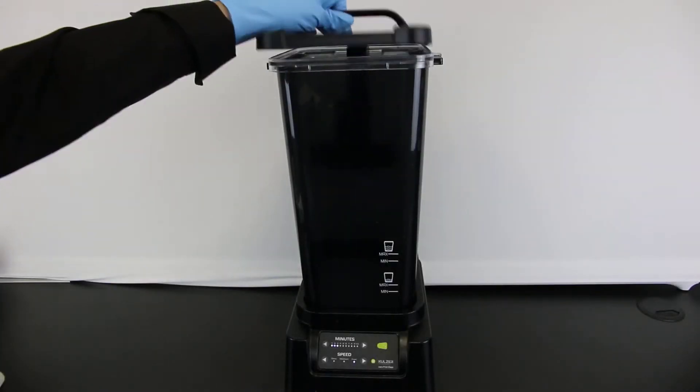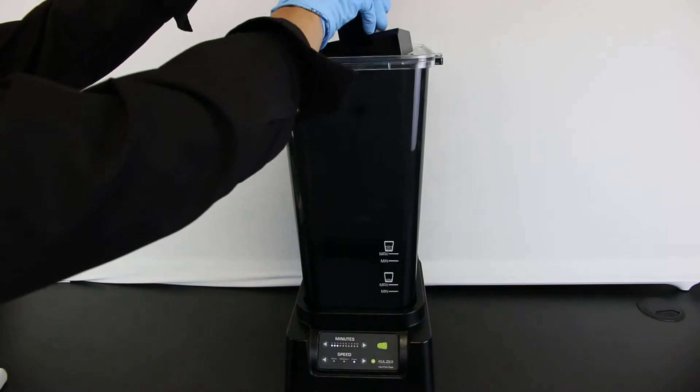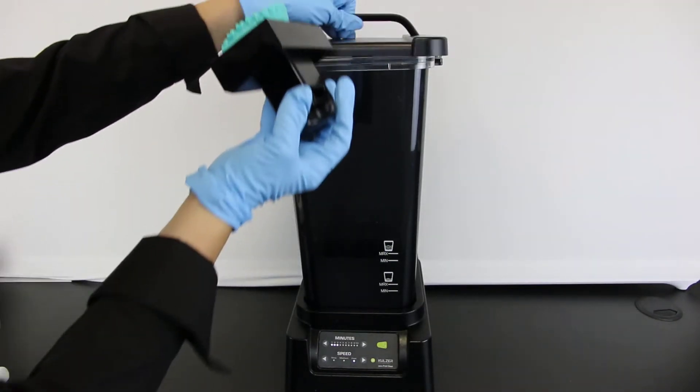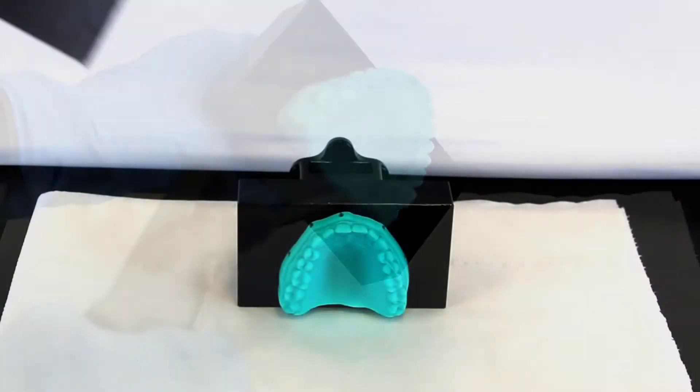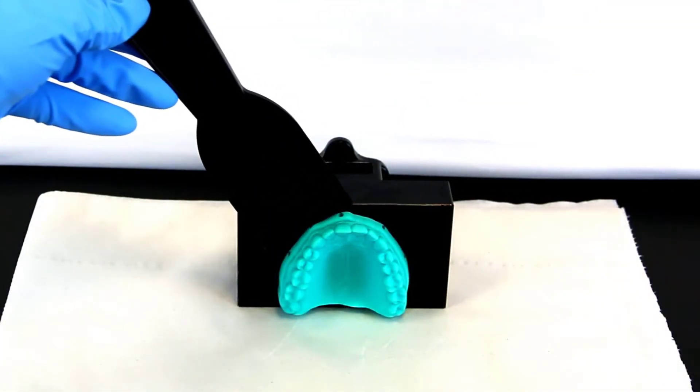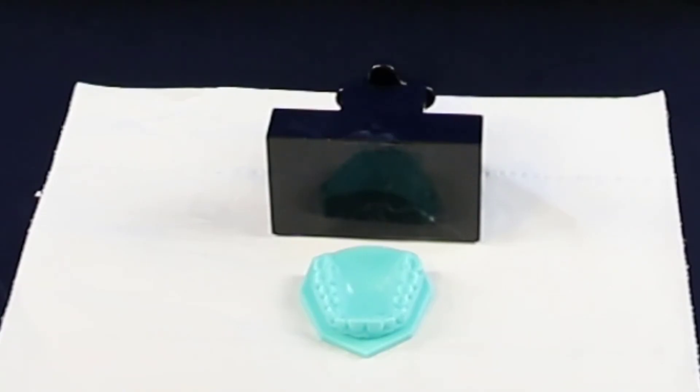After the first cleaning time has expired, unscrew the printing platform from the holder in the lid. After the printed object has been blown out with compressed air and removed from the platform, put it into the second cleaning bath. Place it on the grid in the inner container.